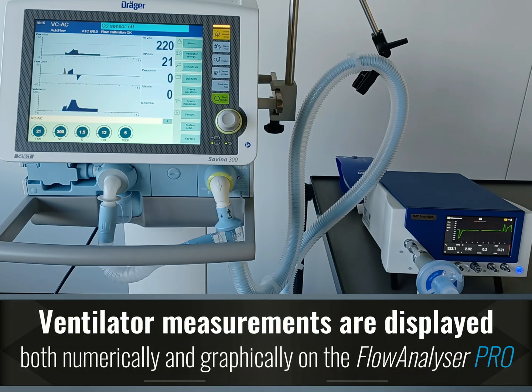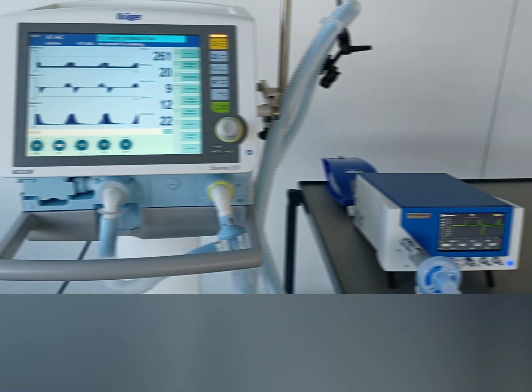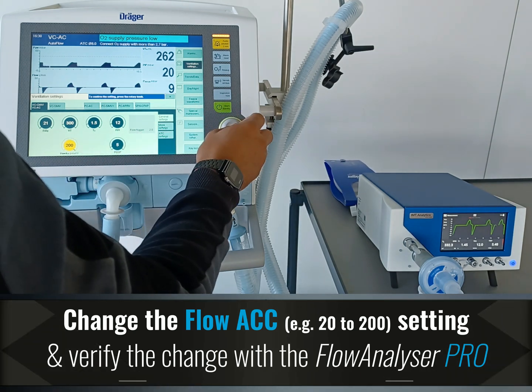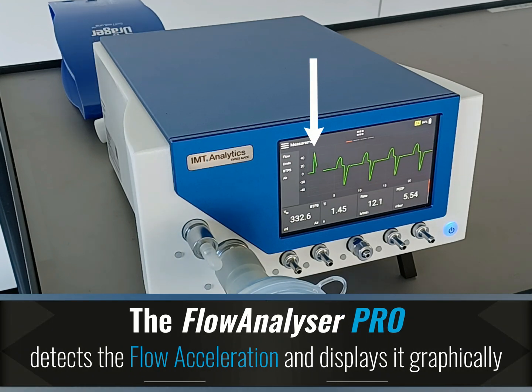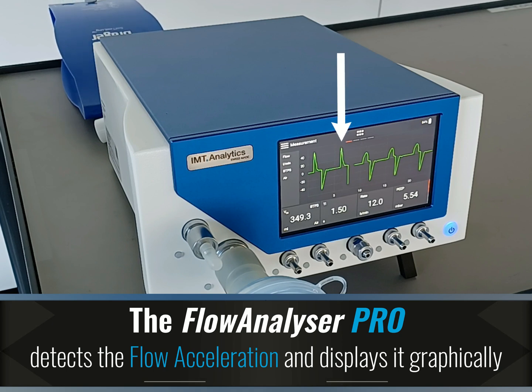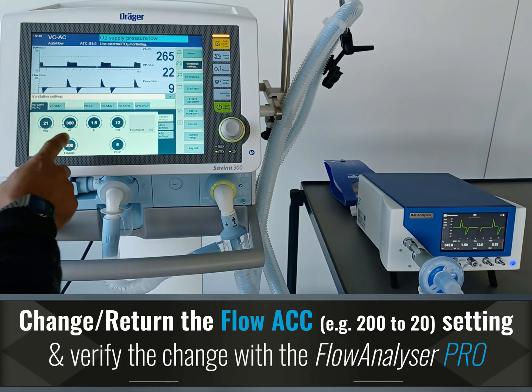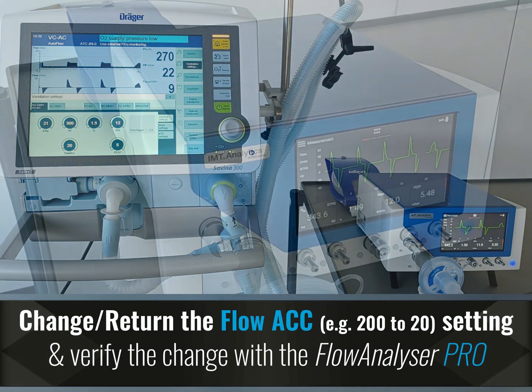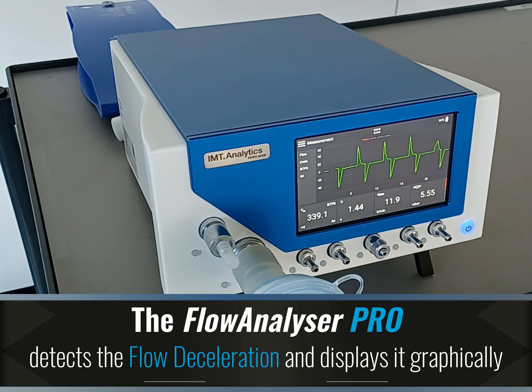Ventilator measurements are displayed both numerically and graphically. Change the flow acceleration setting and verify the change. The Flow Analyzer Pro detects the flow acceleration and displays it graphically. Change or return the flow acceleration setting and verify the change. The Flow Analyzer Pro detects the flow deceleration and displays it graphically.